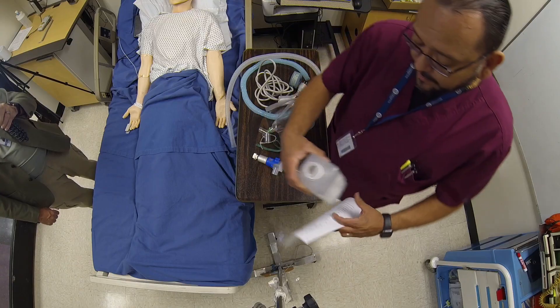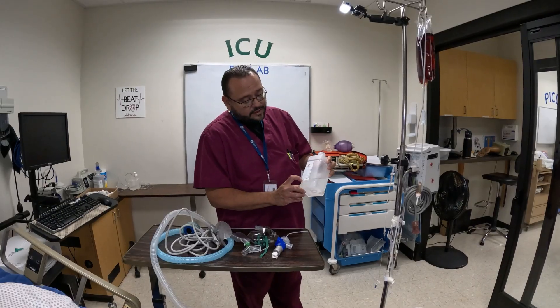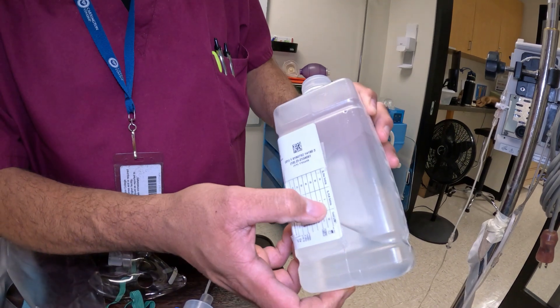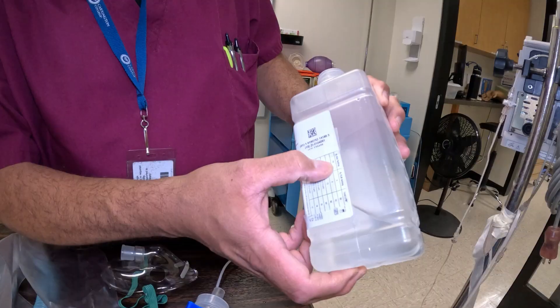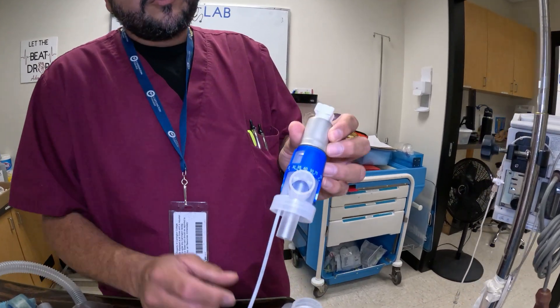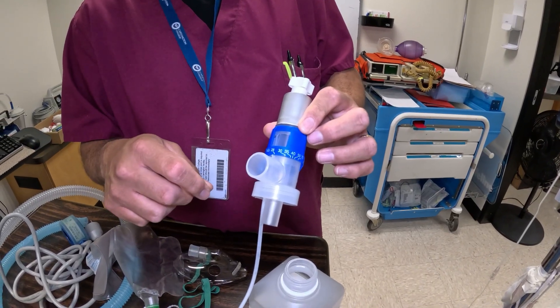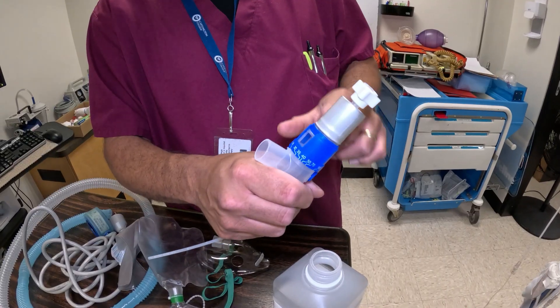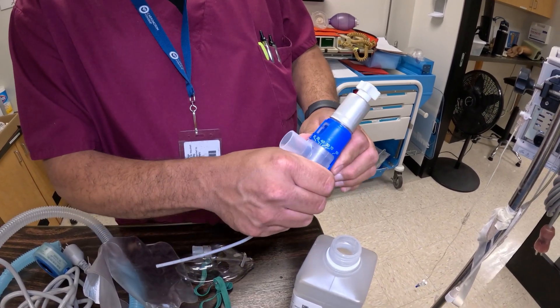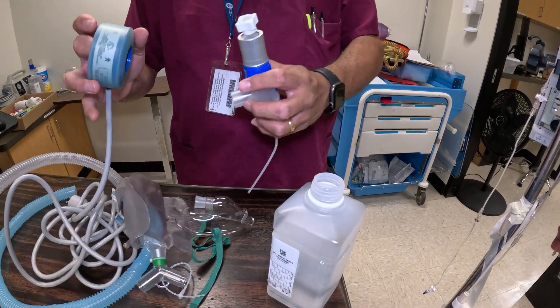Make sure you have your equipment ready. I've already removed the cap, but this should have a cap on it. On the side of the device you'll have a chart that tells you what liter flow per minute to get the FiO2 you want — for instance, six liters of flow will give you 28%. You also have a dial here that coincides with that chart, so you would turn this to 28% and set your flow meter to six liters. This is the Venturi principle, so as you change the numbers you'll see the opening either go bigger or smaller.